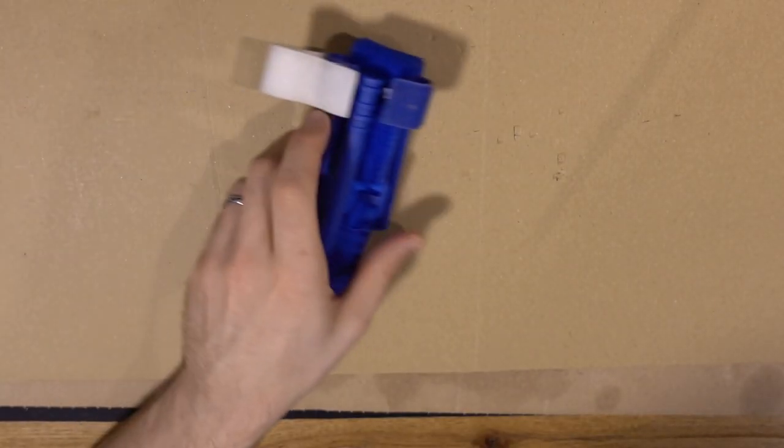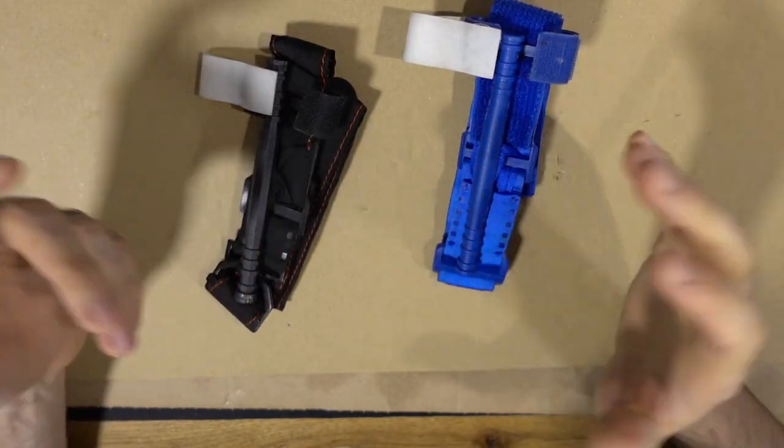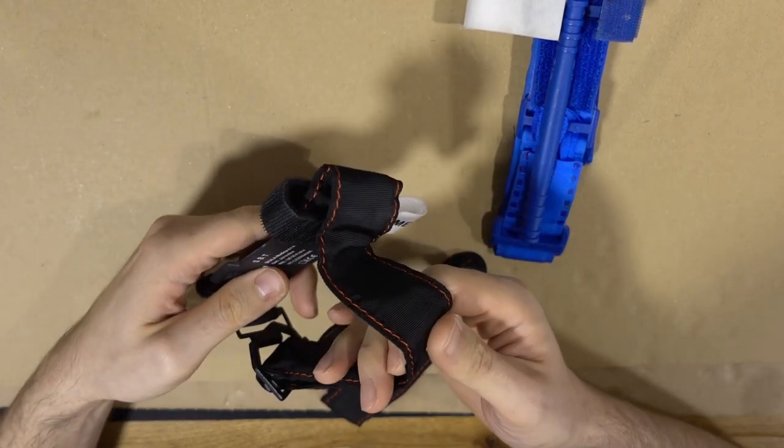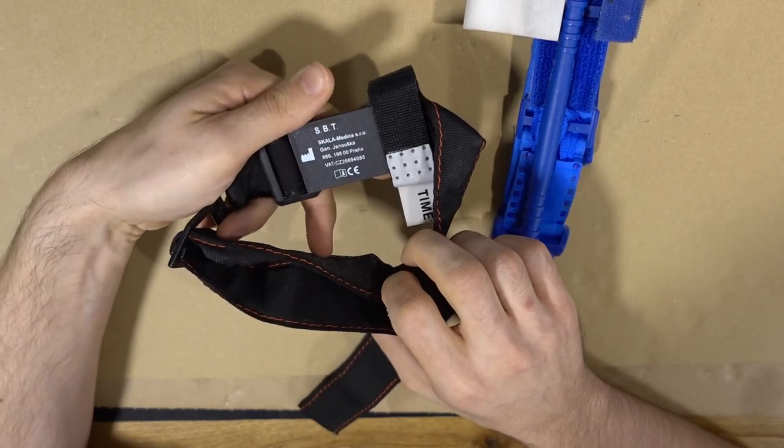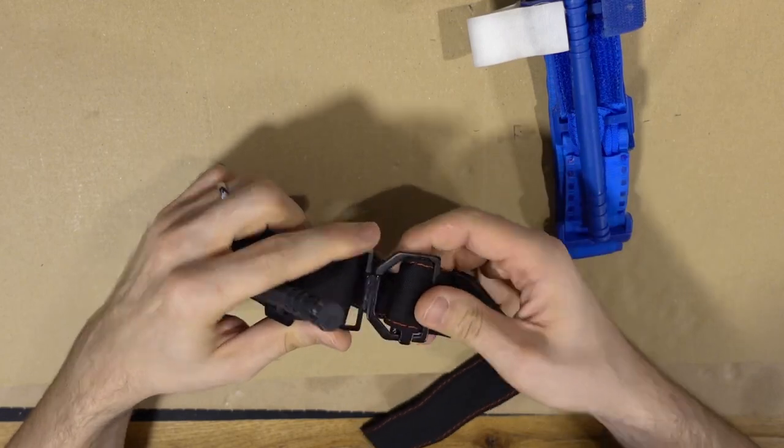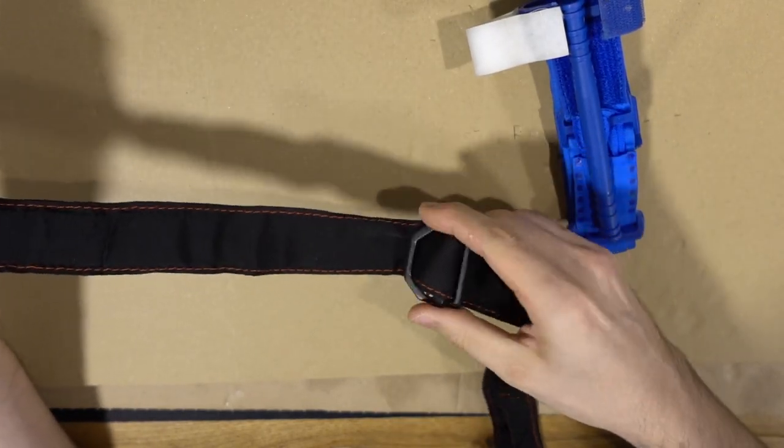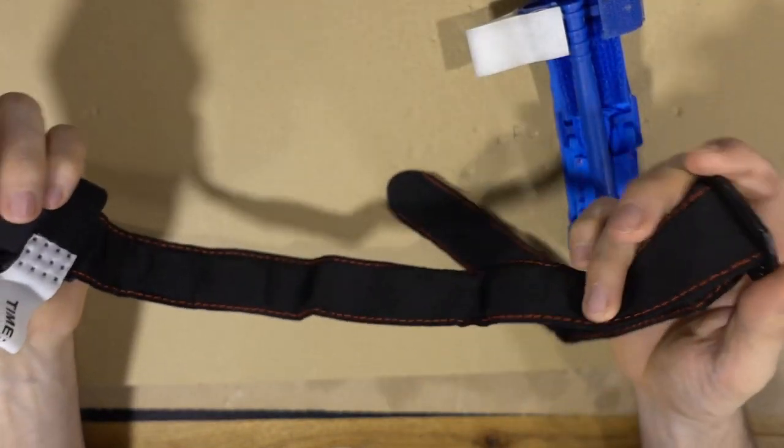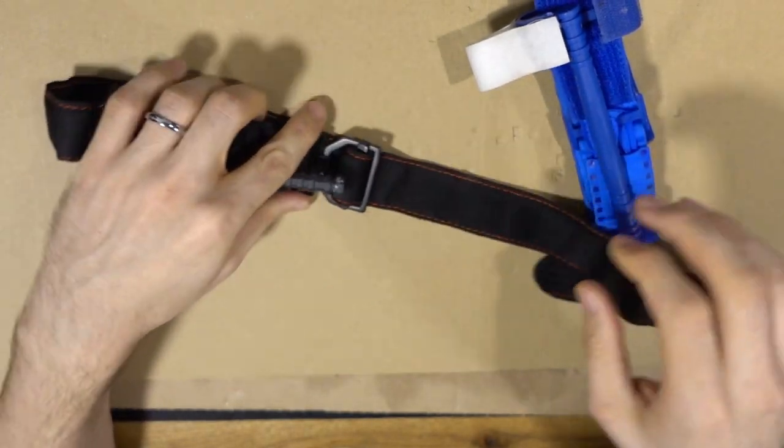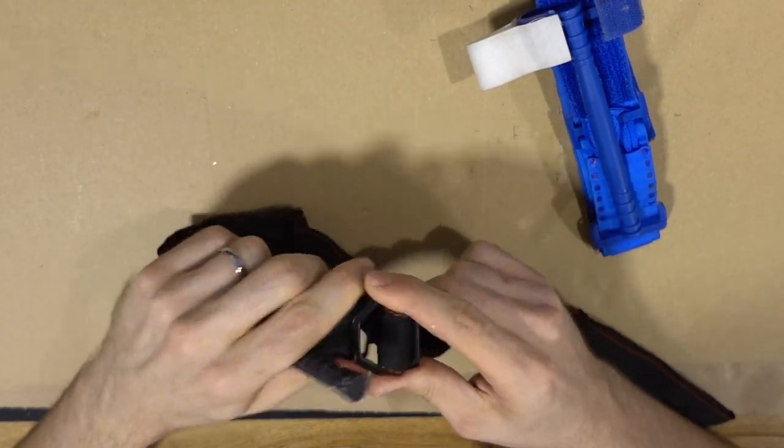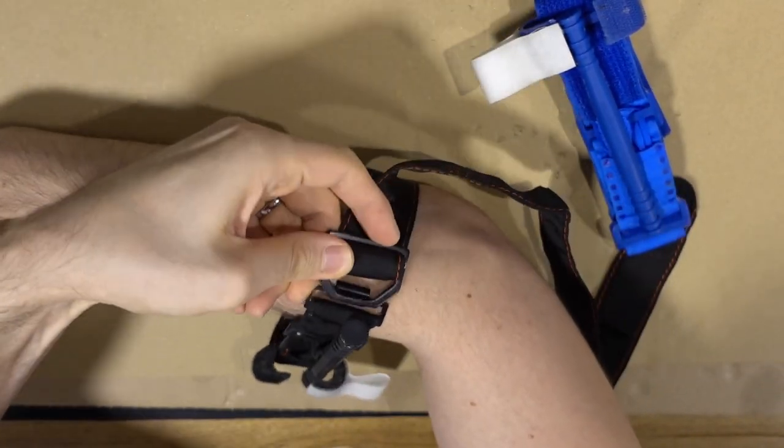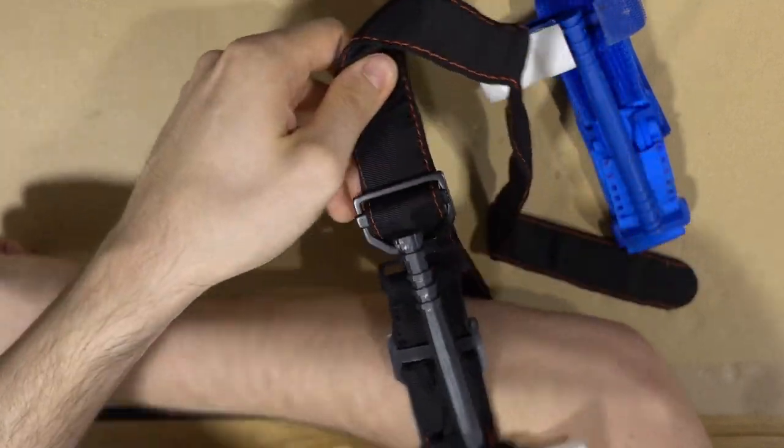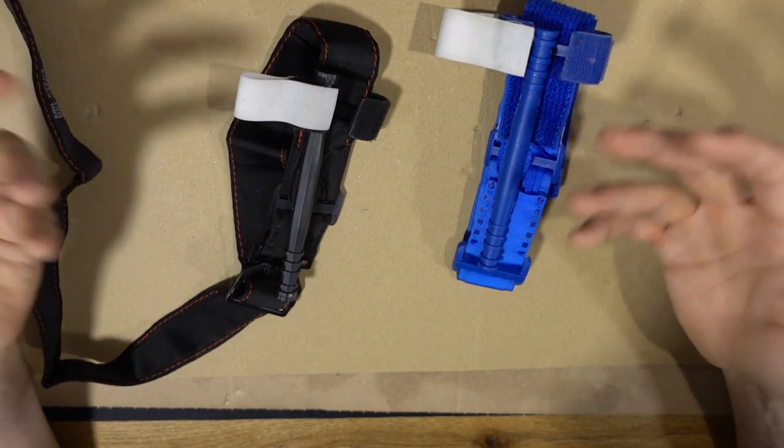So one last word. While there are many different tourniquets, some of them are recommended by big institutions, and some of them seriously also work. I mean this one here I ordered once and they're actually not bad. They have a big difference. You can actually open it like so, and this is actually really nice for wrapping it around a limb very fast for somebody else. But if you do it on your own, this is just fumbling. Imagine I have this on my own arm and I have to somehow close this. It's not gonna work, or well it does but it's way harder.